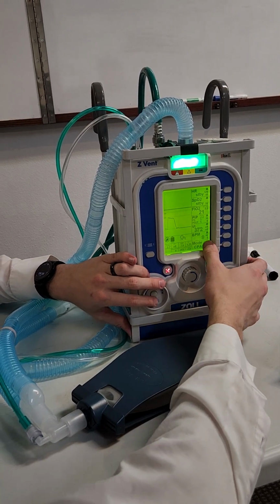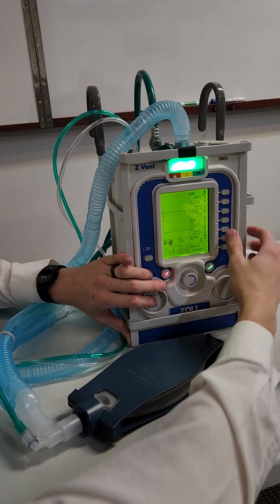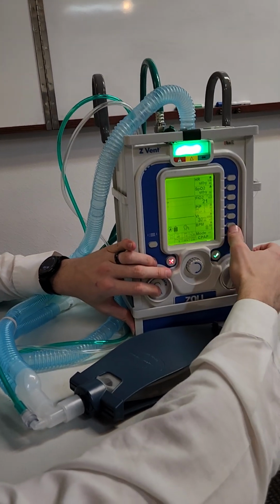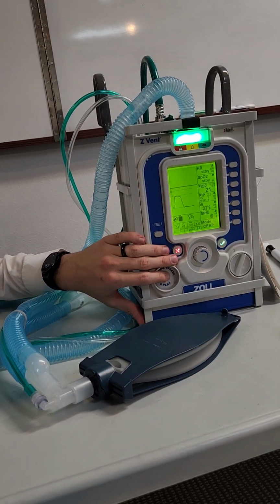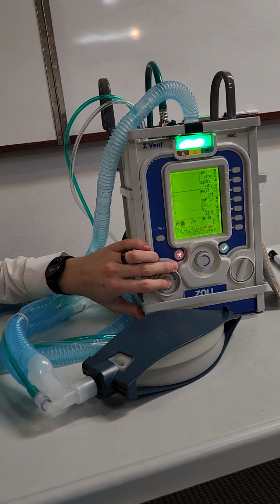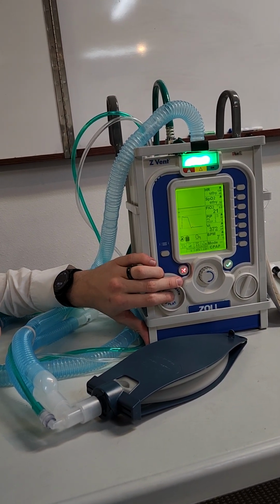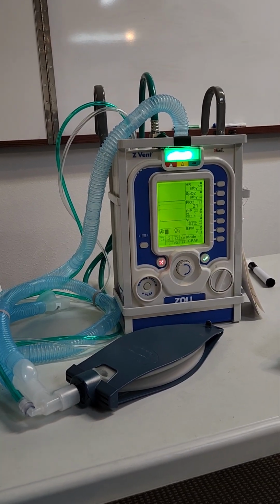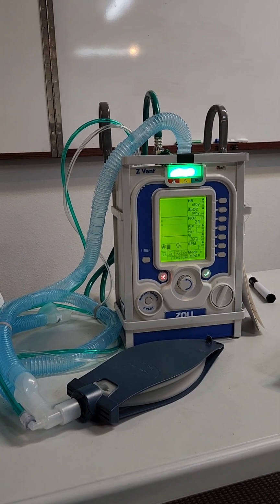And then breath per minute. So where's your? It's got 2 offs. Is that your high and low? Yep. So okay. Top one's high, this one's low. Okay. When it comes to breaths per minute, so you can have it set to if they breathe less than 4, tell me about it. Additionally, if it gets the apnea alarm, so the breaths per minute are too low, it'll tell you to change to a different mode because this patient is not breathing.